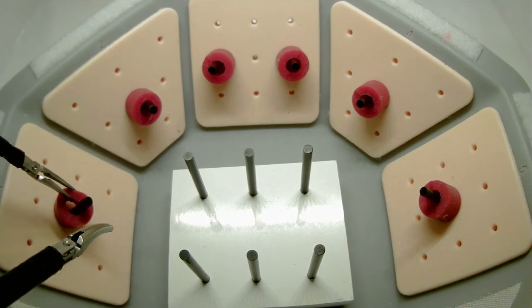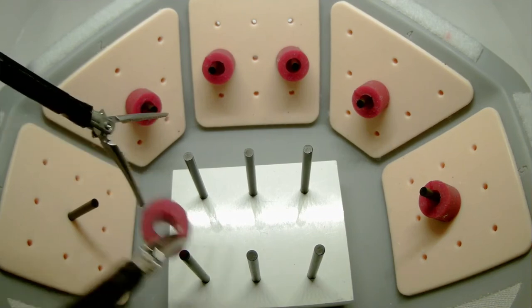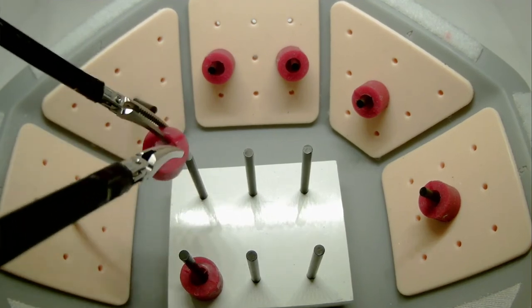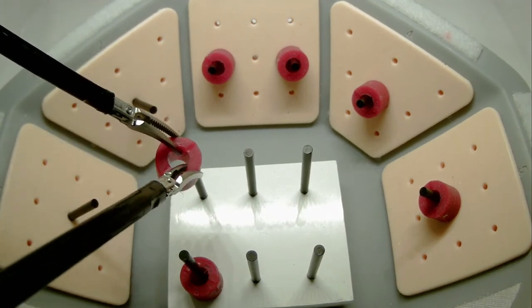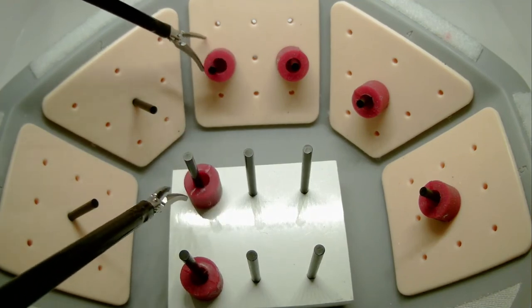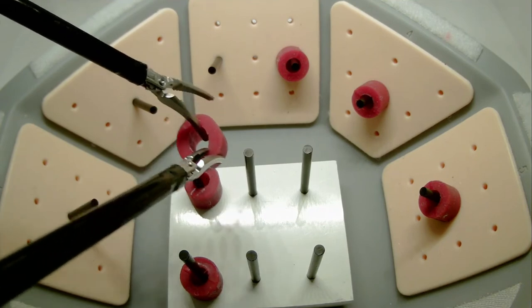Again, performing a transfer mid-air. You are not required to duplicate the exact order, but it can be helpful.